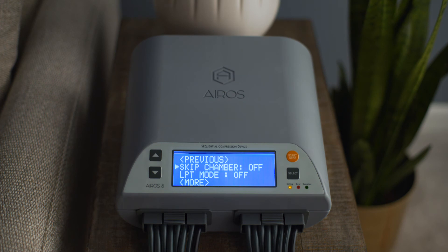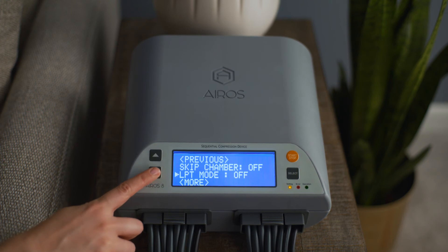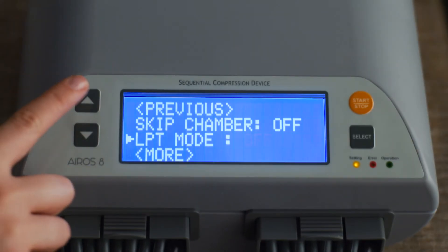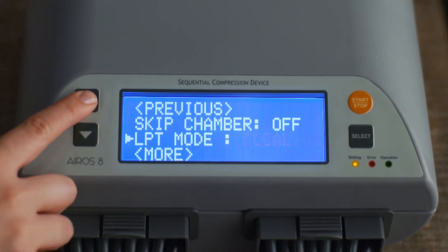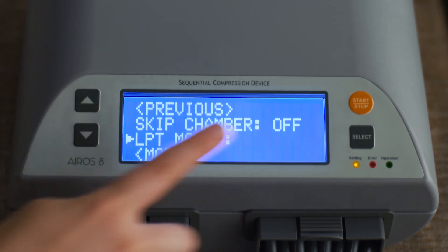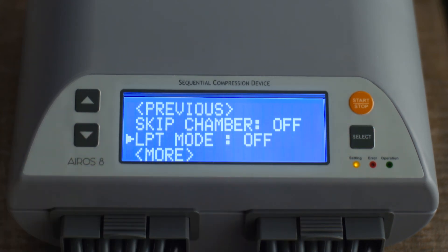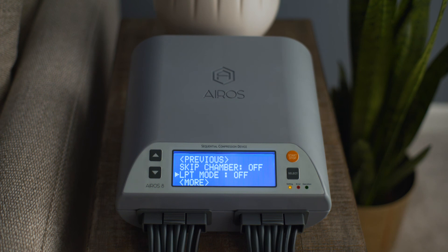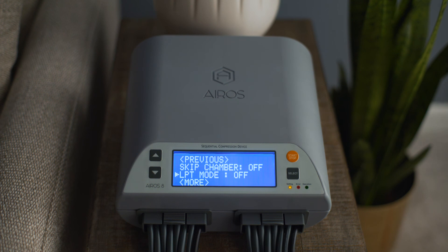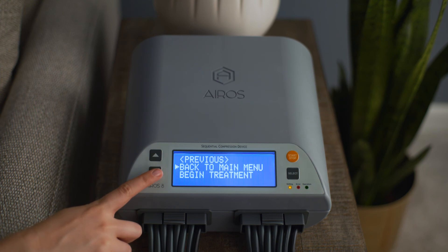To operate the device in a Lymphedema Preparation Treatment mode, which provides a secondary therapy before the main gradient mode or pressure mode therapy, scroll to LPT mode and press the Select button. LPT mode can be set to Clearing or Focal Modes. Press the Select button to confirm your selection. To return to the Main Menu screen, scroll to Back to Main Menu and press the Select button.